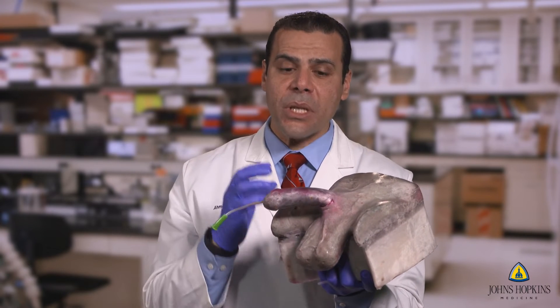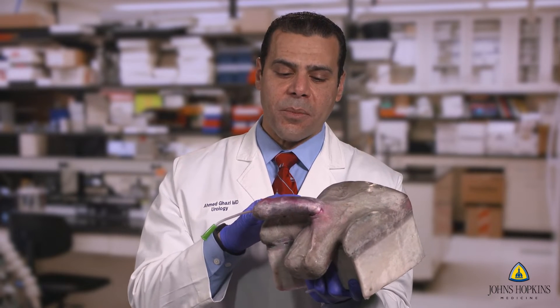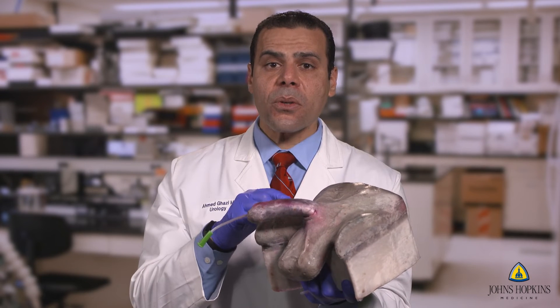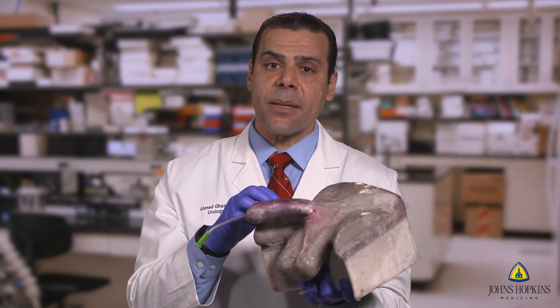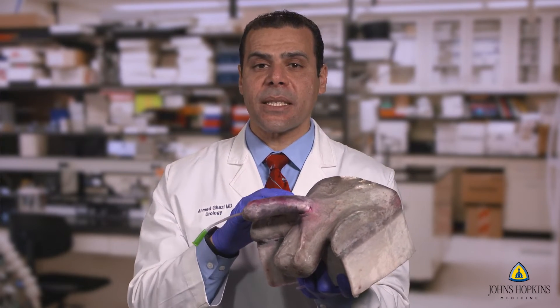Going into really starting to develop this model further, we are looking to develop this with previous fibrosis in the corpora for re-implants, but also looking at areas where perforation occurred and having to place the extenders in order to place that implant — so ways to mitigate and troubleshoot during complex cases.